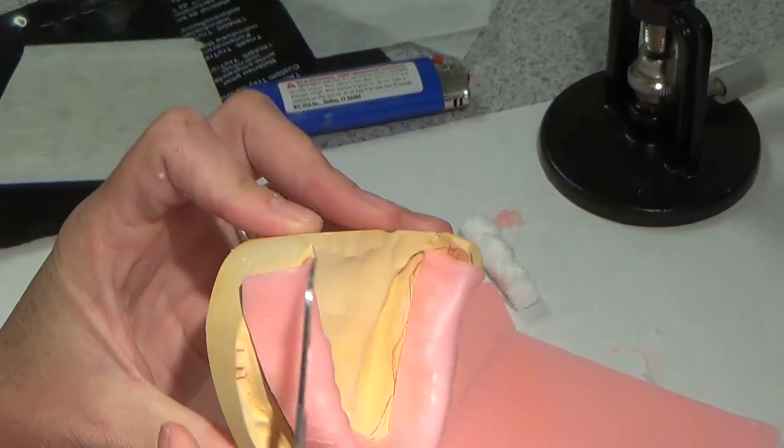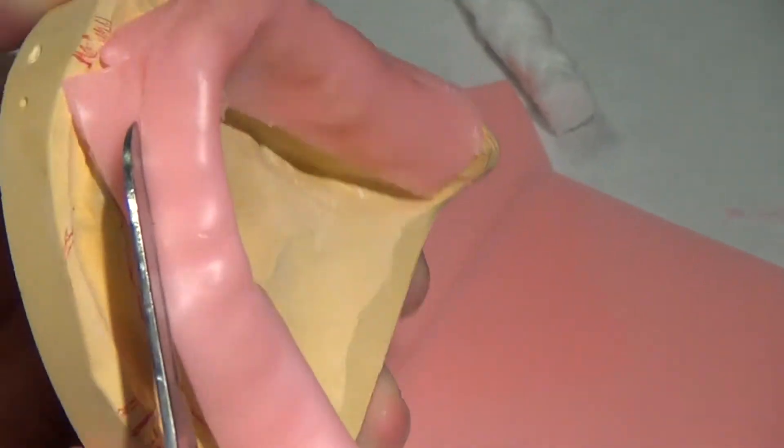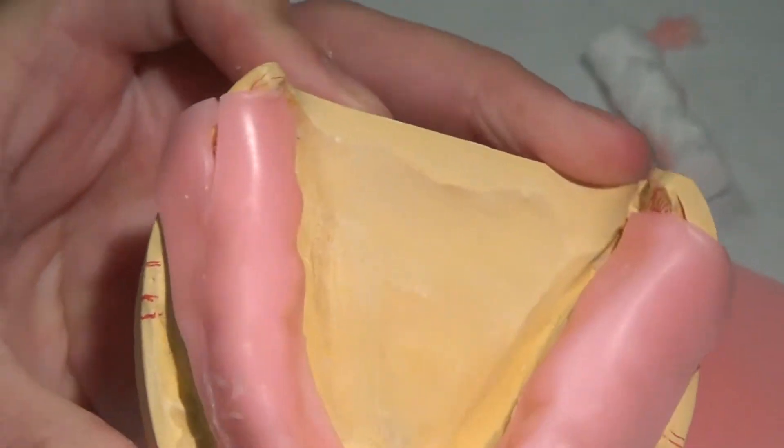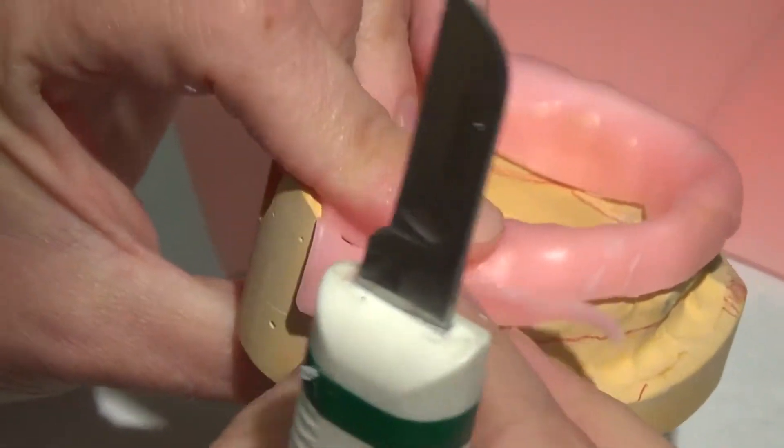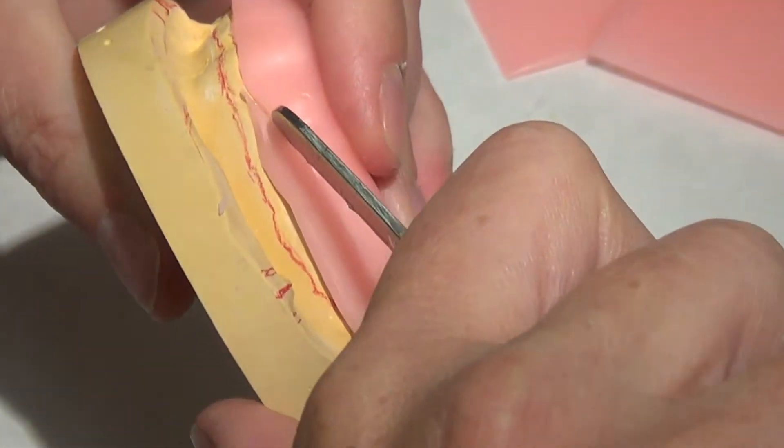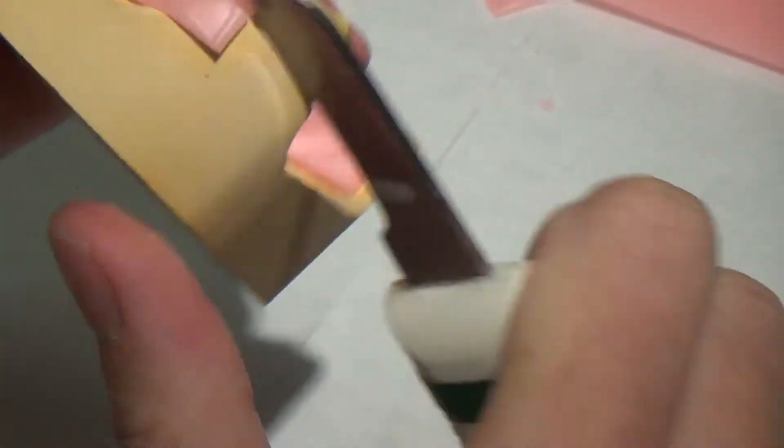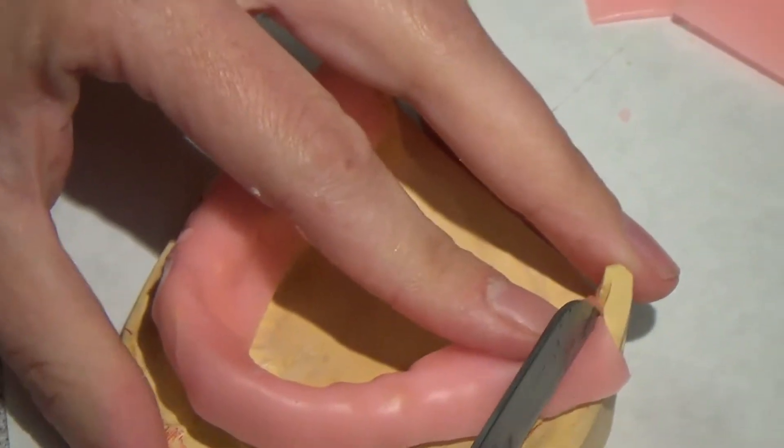So I'm going to heat this, come in, get really close to the gingival margin. The more you do this, the easier it will be. I promise you will not fight wax the rest of your life, maybe for the rest of this semester.